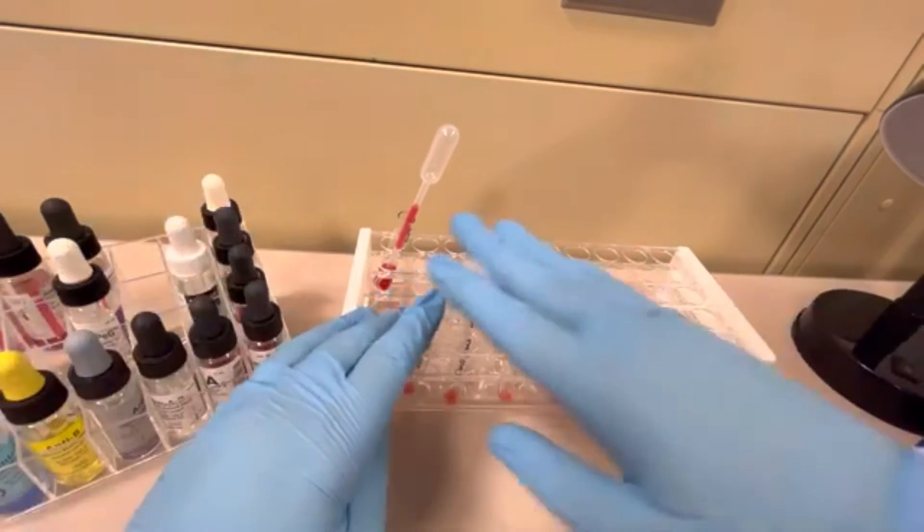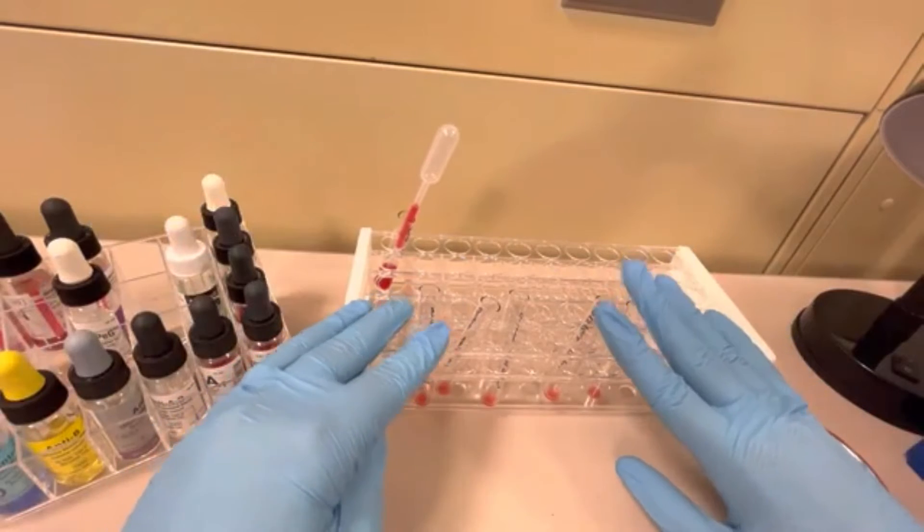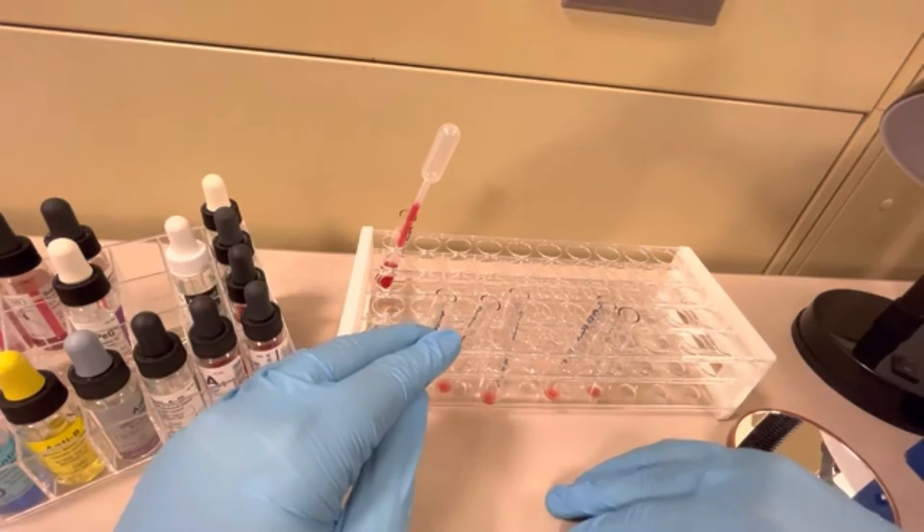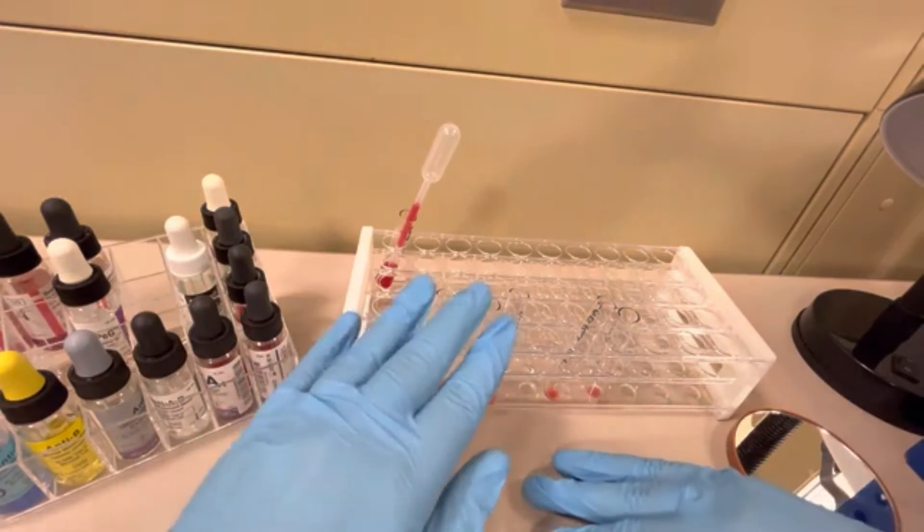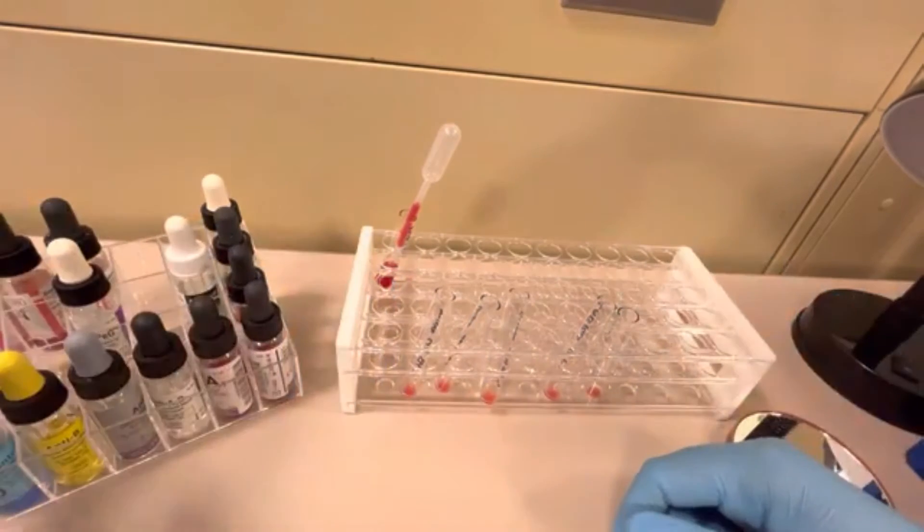Okay, I've returned. All of these tubes have been washed four times. Unfortunately, I did it manually. Great fun.